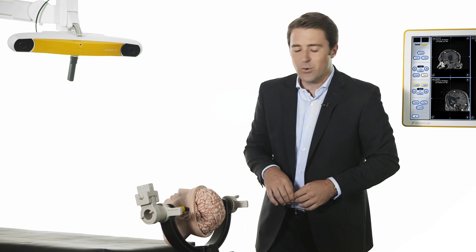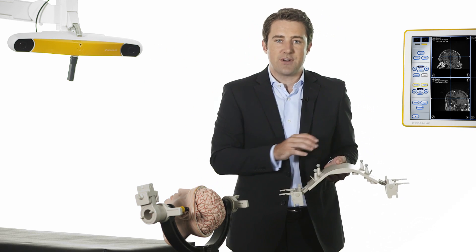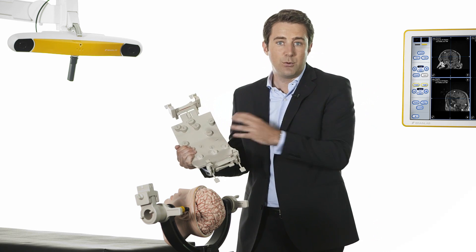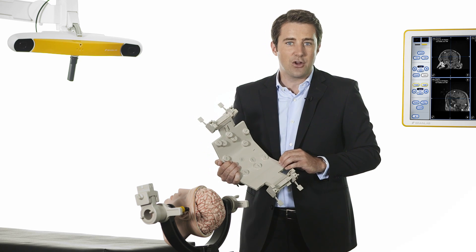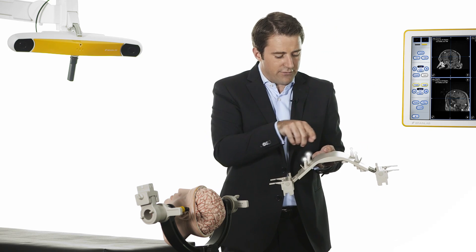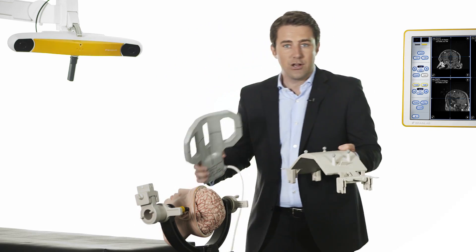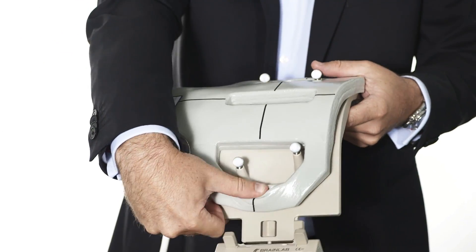AIR software works in combination with dedicated AIR hardware. This is the registration matrix for use with GE MR scanners. The bottom contains MR marker spheres that will be visible in the acquired MR images and build the basis for the automatic registration. The top of the matrix is fitted with reflective marker spheres, seen by the navigation camera. With the GE top coil attached to the matrix, navigation and imaging components unite.